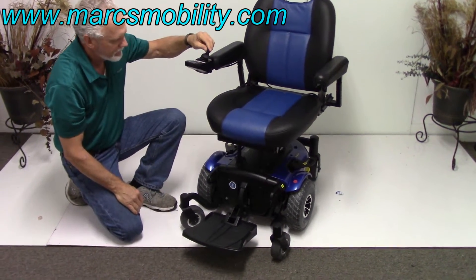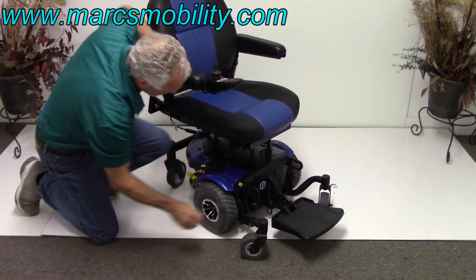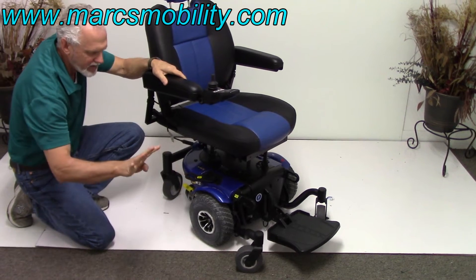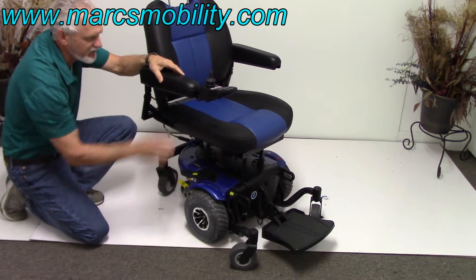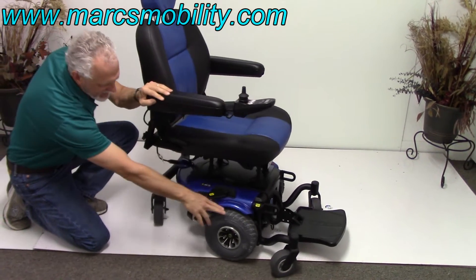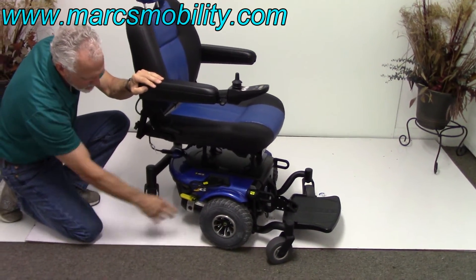You've got large anchor points on both sides — two on each side for a total of four anchor points — and these are on the frame so they're not ever going to move. You've got 10-inch solid tires, caster wheels in the back, and five-inch caster wheels in the front.